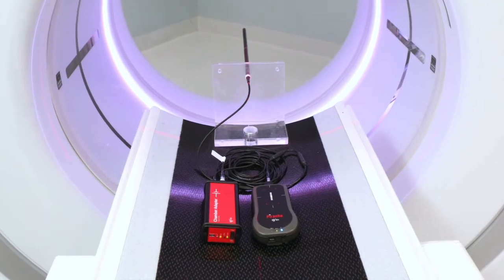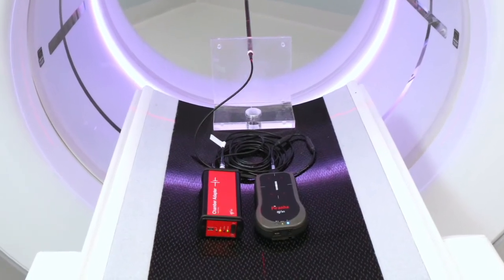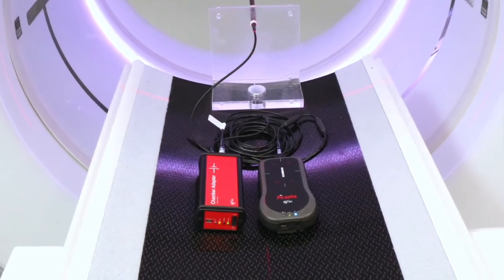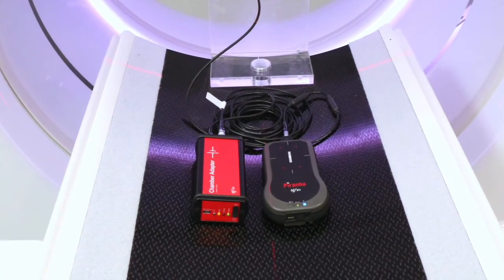Ion chambers require bias voltage, therefore you will need your chamber adapter connected between the ion chamber and the piranha.